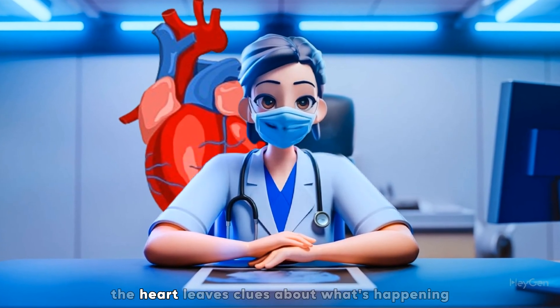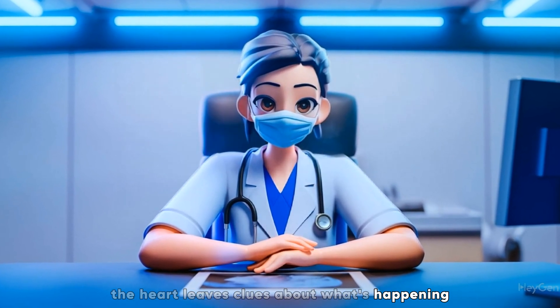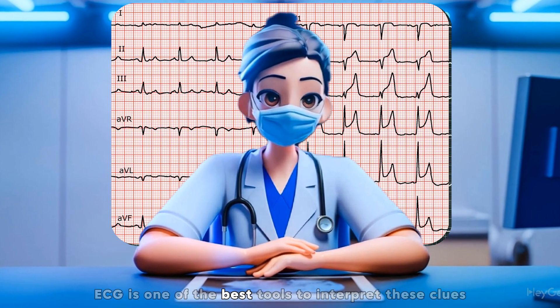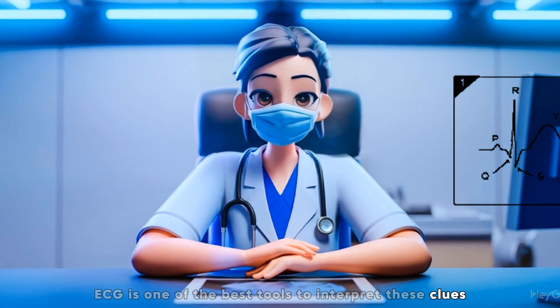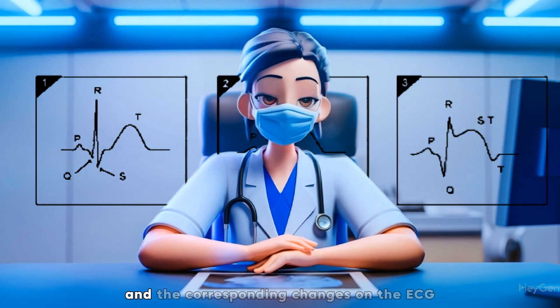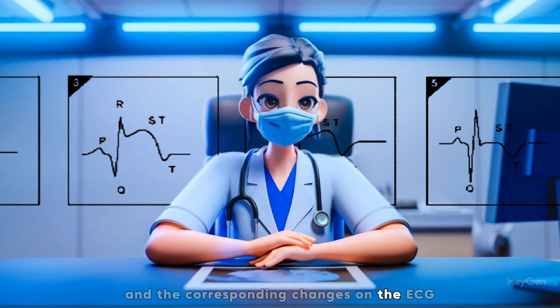Fortunately, the heart leaves clues about what's happening, and the ECG is one of the best tools to interpret these clues. Let's dive into the stages and the corresponding changes on the ECG.